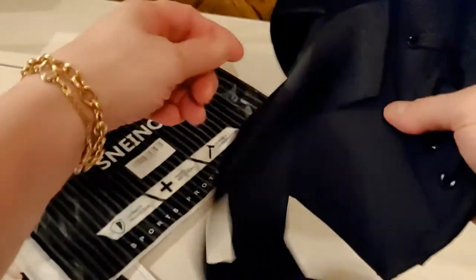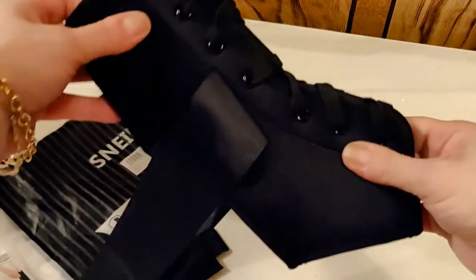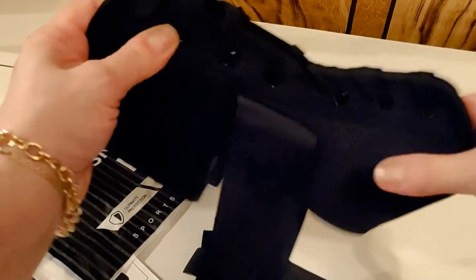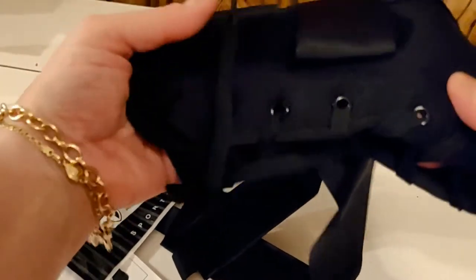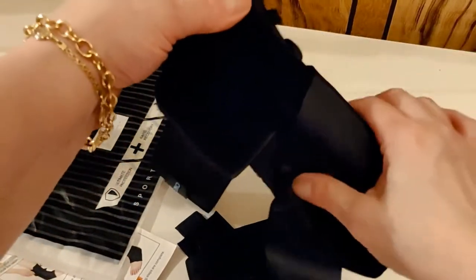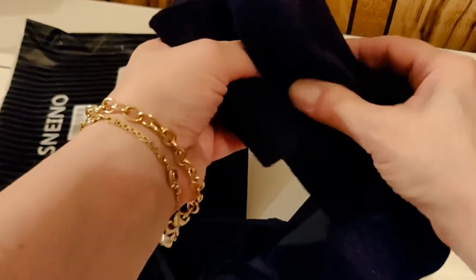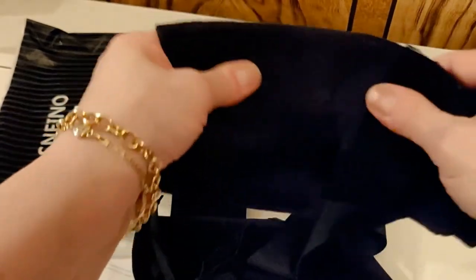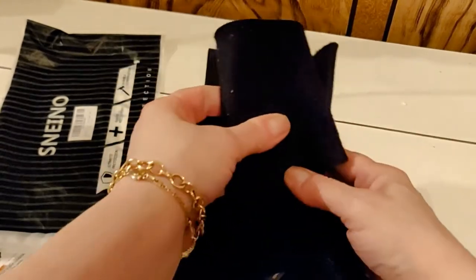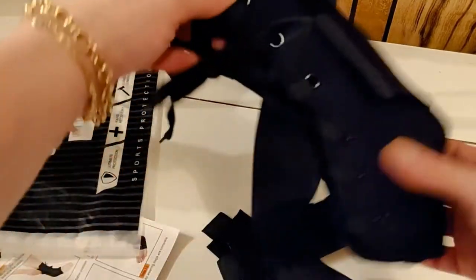That's it here, and I am going to try it on. It's got a smooth finish — it's really nice. Up here is for the Velcro, but the finish here is smooth, and the inside also feels smooth with nothing hard against your ankle. This one that I bought earlier has a little bit more sturdy structure here, which did keep my ankle from wobbling too much, but I found that it hurt after a while so I couldn't use it very much. So then I bought this one.